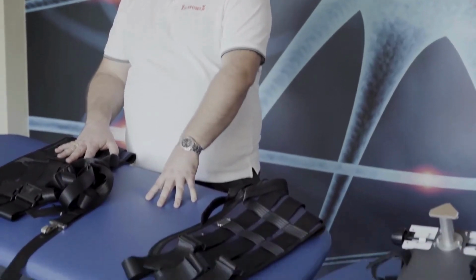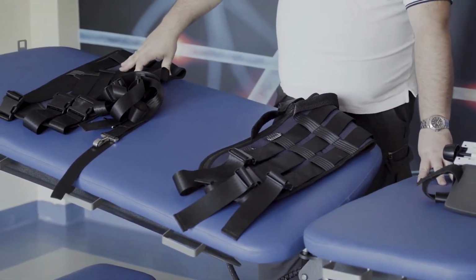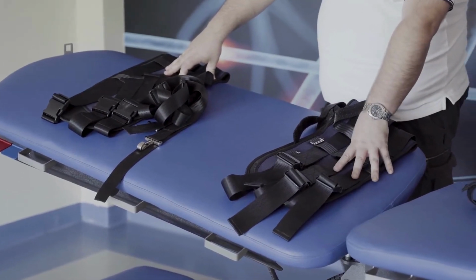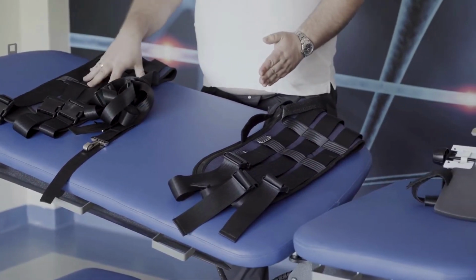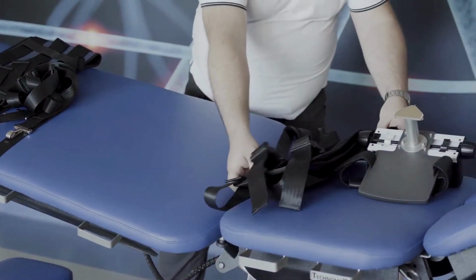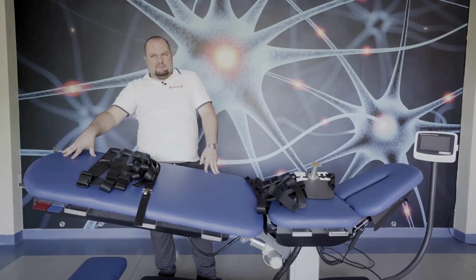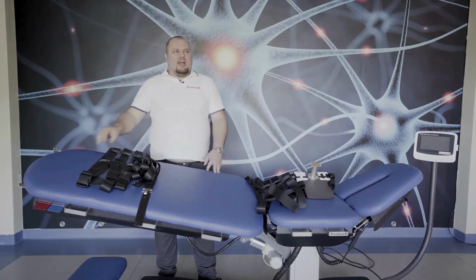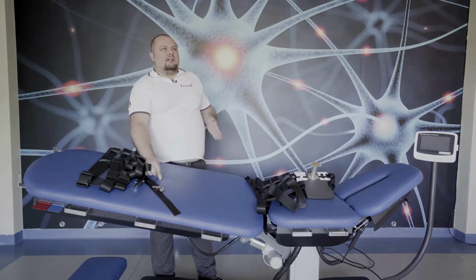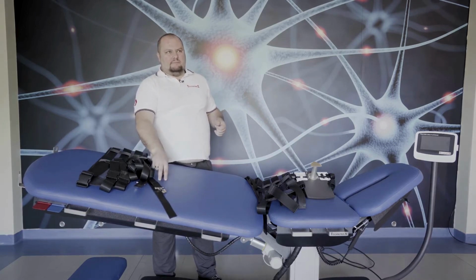This whole part of the table will go away from the stable part. So the pelvis lying on this leg part or lumbar part will slide away with the lumbar belt from the thoracic cage, which is placed on this level. No matter what position of the table we set, the traction will be along the axis, which ensures that this is pure traction for the spine.